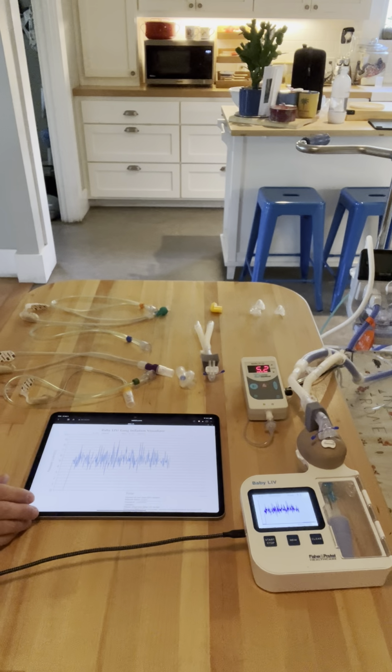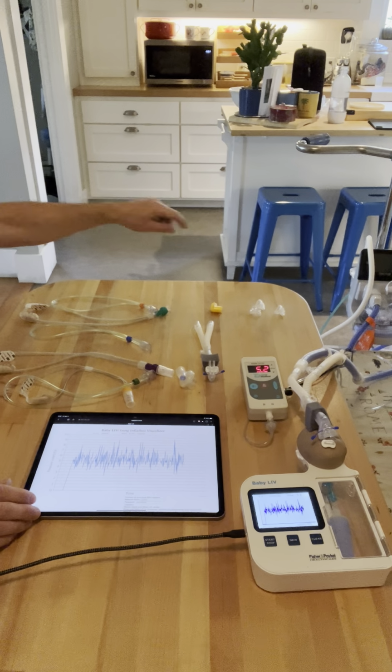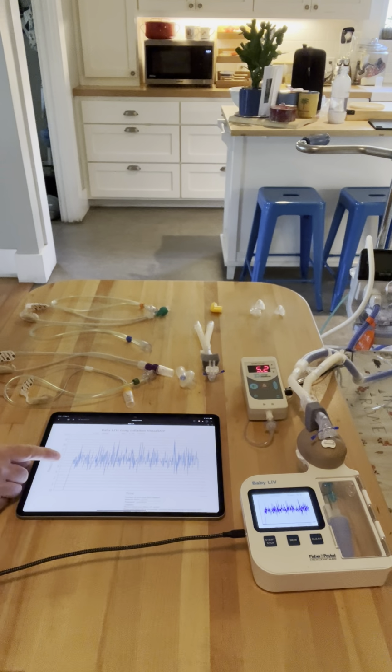I have 100% occlusion in the nares, and I'm bubbling quite nicely over here. And if you look at my baby, these are Bluetooth together, we're getting about 5 centimeters of water pressure, plus or minus 1 or 2. I just need this as our baseline so that when we do cannulated CPAP, we'll have a comparison to do.